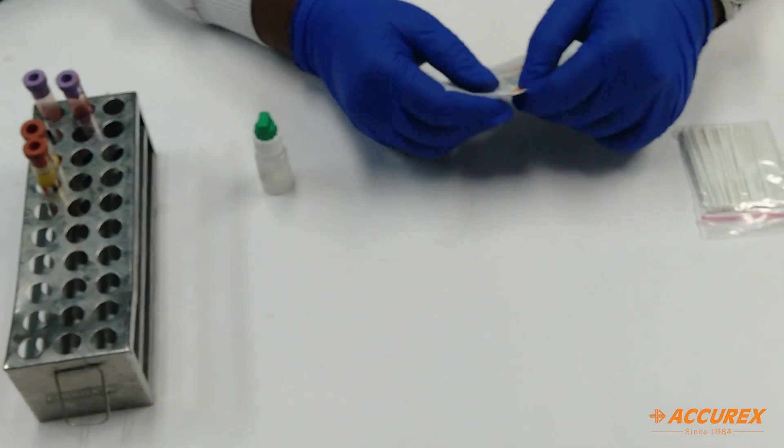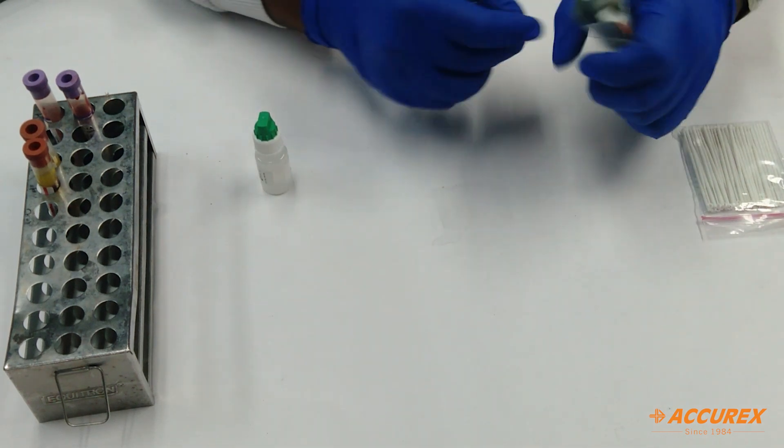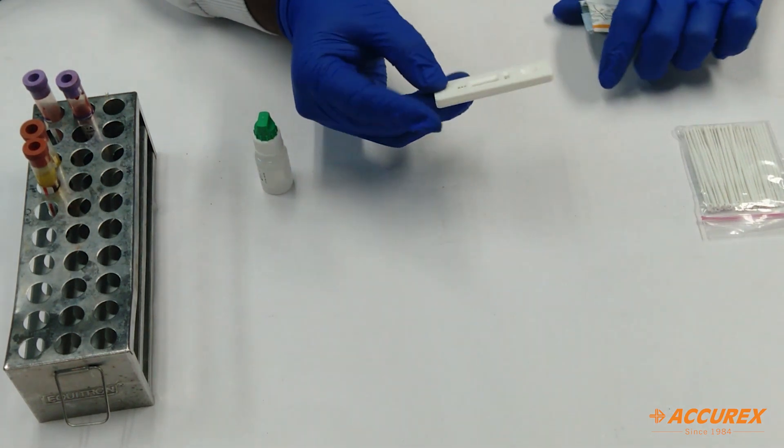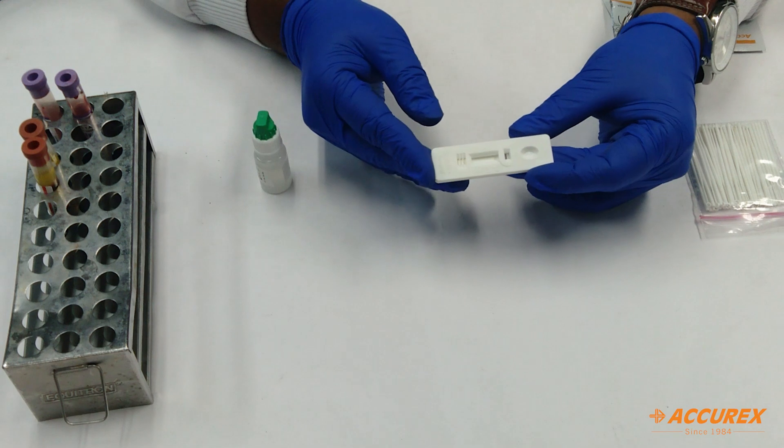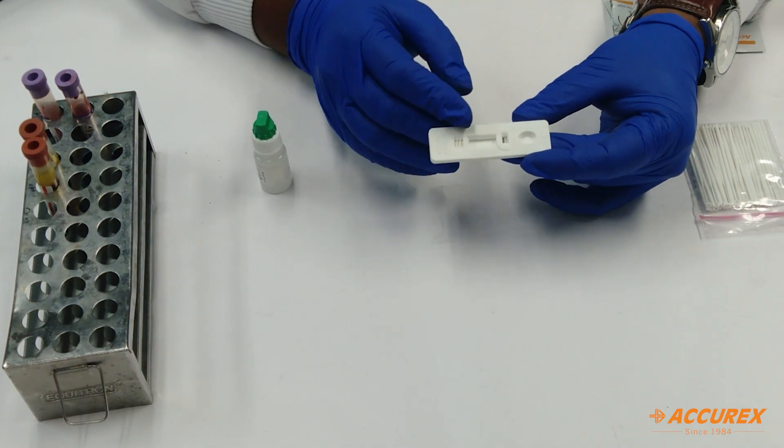So for the testing, I have taken one pouch from the box. So inside this pouch, you will find one card. So this is a card for the testing. So here you can see the multiple windows.